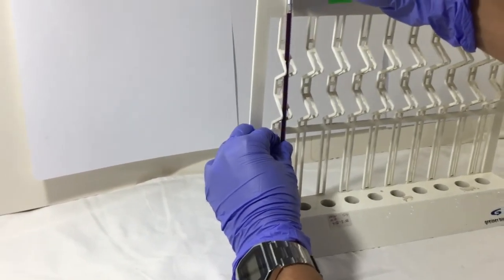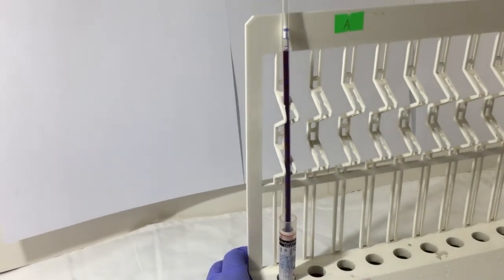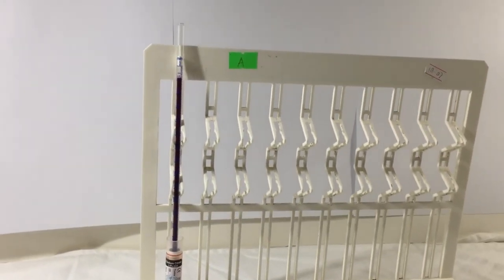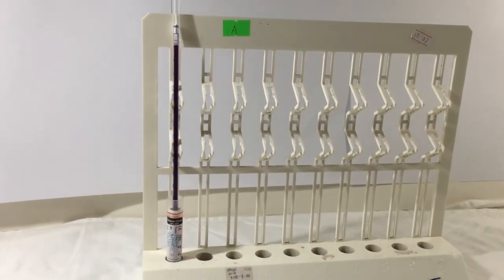Also, make sure that the area where you place your rack inside the laboratory is not prone to any disturbances or vibrations as this may affect the result of the ESR.